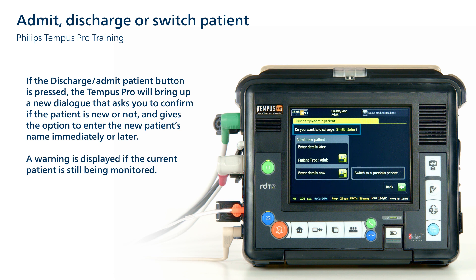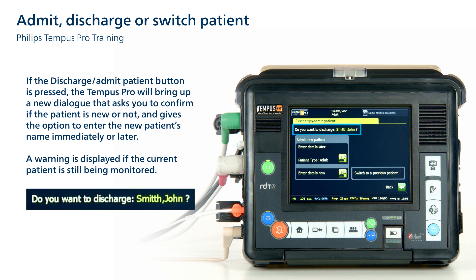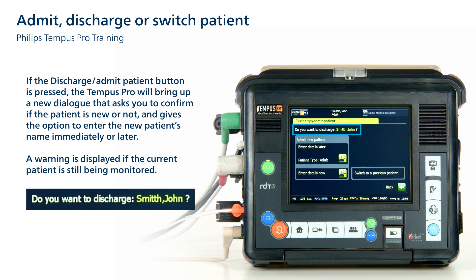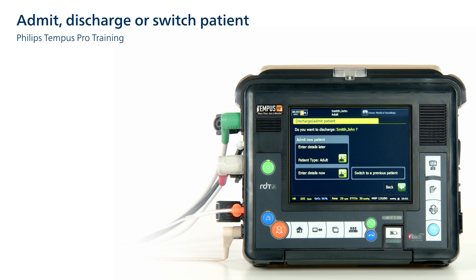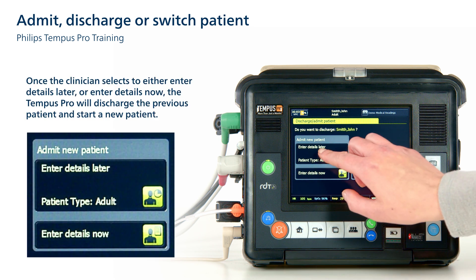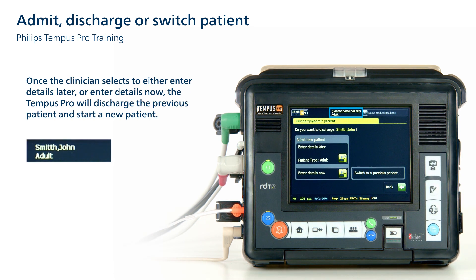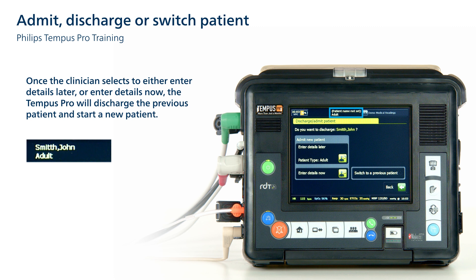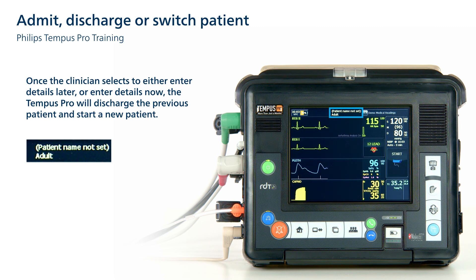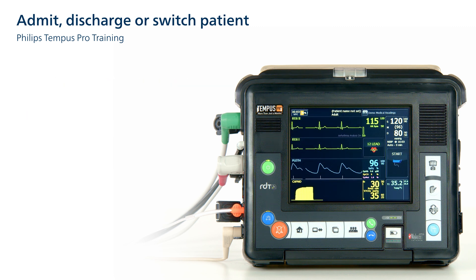A warning is displayed if the current patient is still being monitored. Once the clinician selects to either enter details later or enter details now, the Tempus Pro will discharge the previous patient and start a new patient.